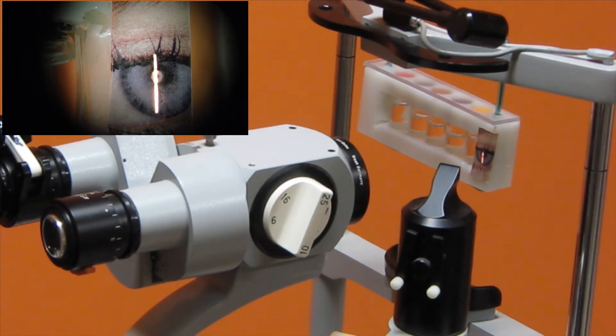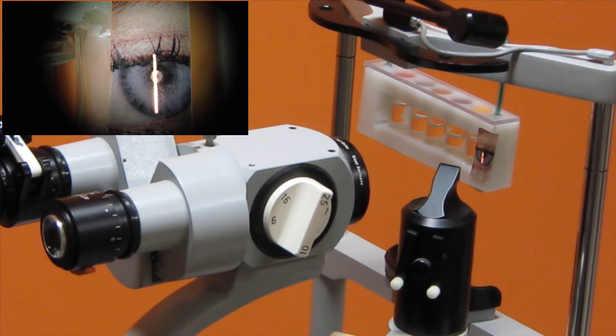Now, the iritis test kit is carefully focused on the image of an eye.